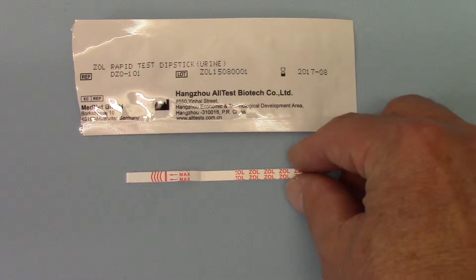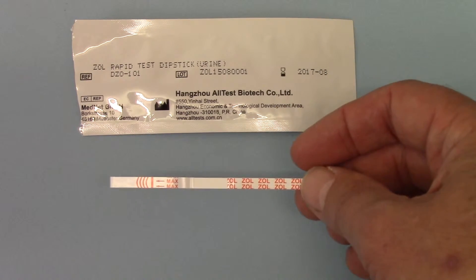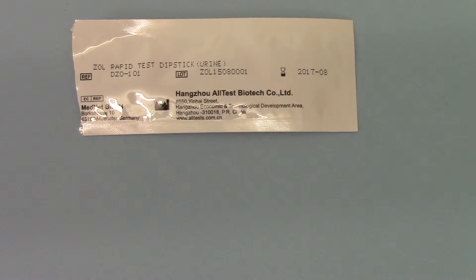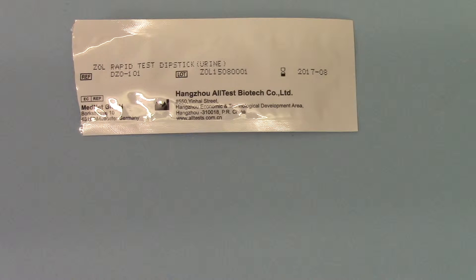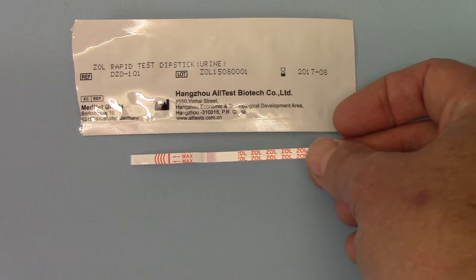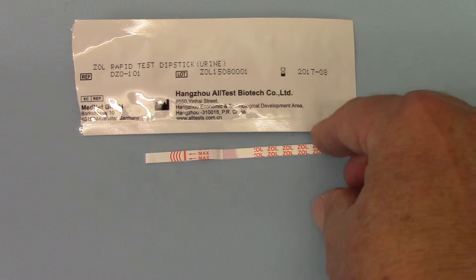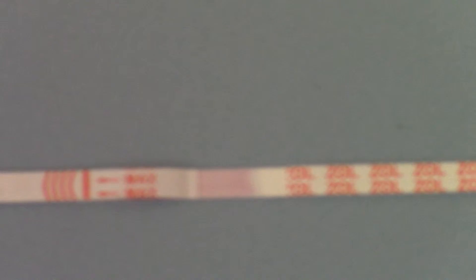Zolpidem tests are very easy to perform. This is a test strip with a maximum dip line and coating on the end. If I simulate a test by dipping this into a simulated urine sample, we need to dip it for just a couple of seconds until we see some pink dye starting to run up the central portion of the membrane, as is happening here. I'm just going to focus in on that to give you a better shot of the test — remove the foil — now we should get a focus on that.